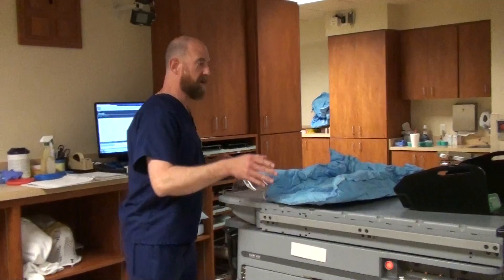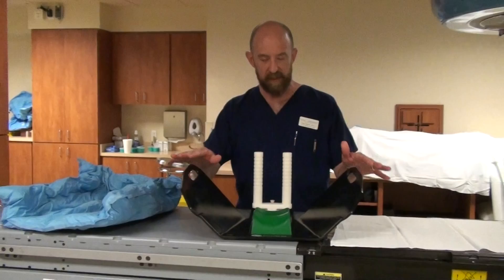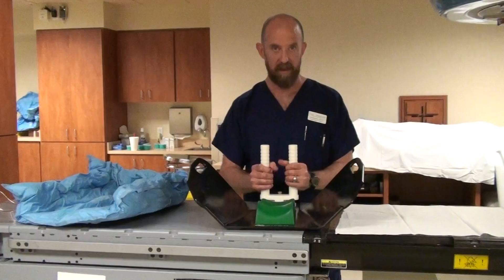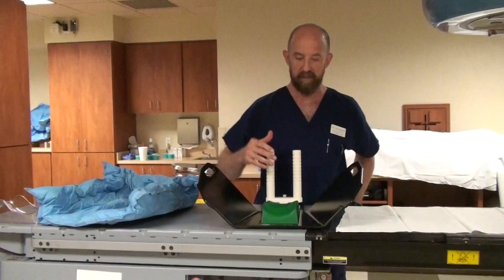You can also have a wing board. The wing boards vary in size and shape, but this is the one we use here at Texas Oncology. The patient's head goes here, their arms are held here, their elbows fit on the side of the wing board, and their hands hold right here. This gets their arms up out of the way so you can do a treatment on their abdomen or chest.